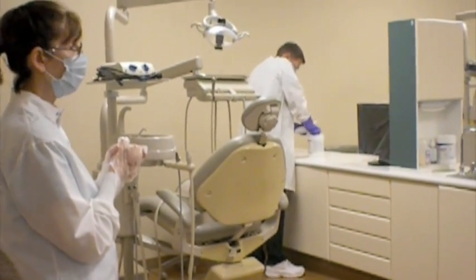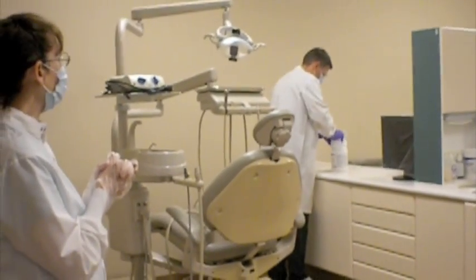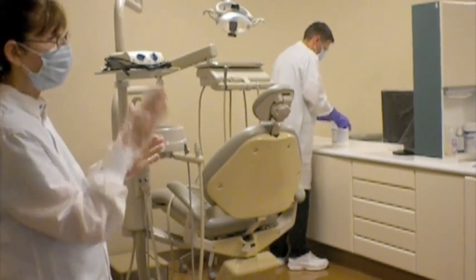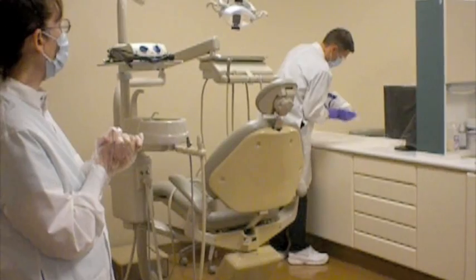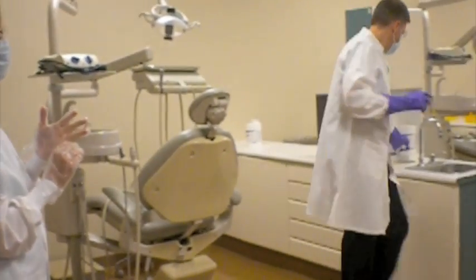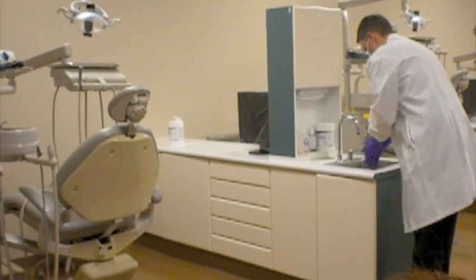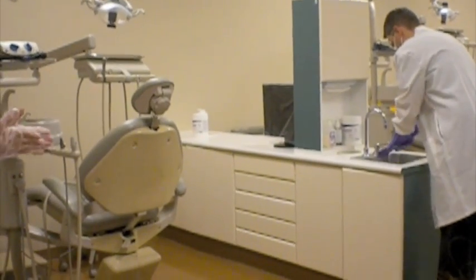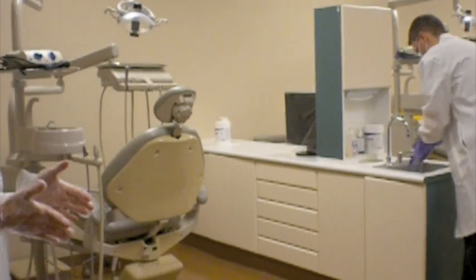the wipes container. He'll begin at the top of the container, and he'll work his way from the top to the bottom. So the top will get wiped, the sides will get wiped, and the bottom will then get wiped. And when he's through wiping it for the first time, it will go on the clean paper towel. He'll discard the paper towel that it was originally on, and the disinfectant wipe that he utilized. He will wash 20 seconds because right now he is moving from a sanitization wipe to a disinfection wipe.